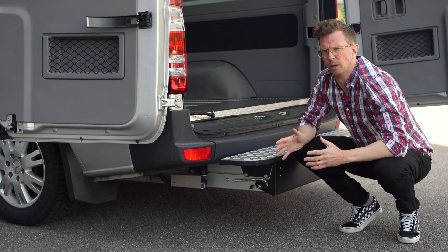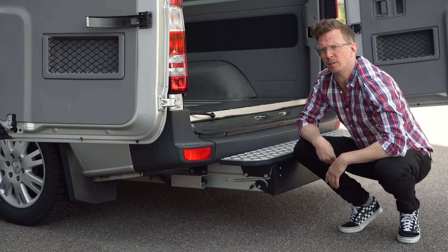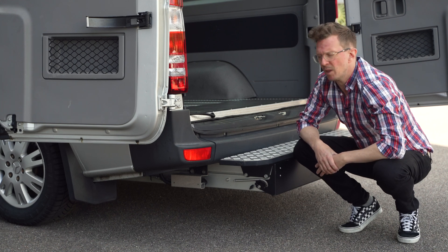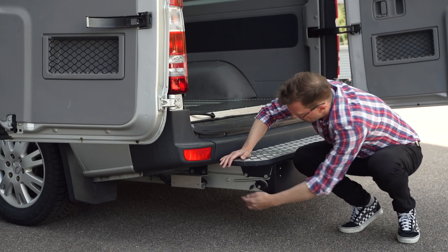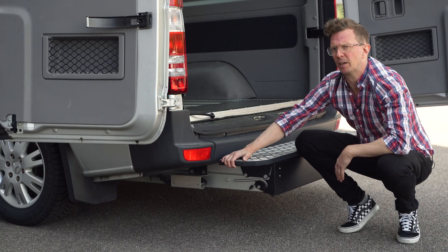Taking into account that wiring and hydraulics are the same in all cassette lifts, we dare boast that no other lift is as quick to install as ours. We have mounting brackets for the majority of minibuses available today, and the mounting brackets in combination with this groove along the side here makes the installation process very quick and easy.